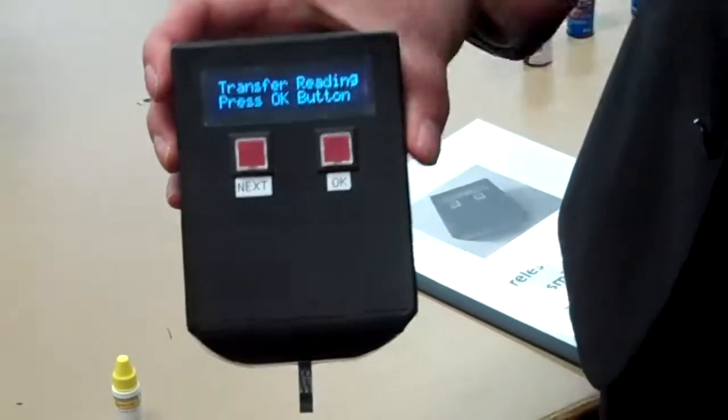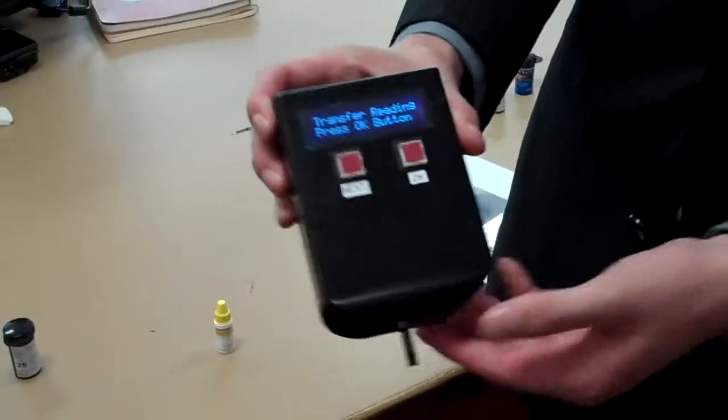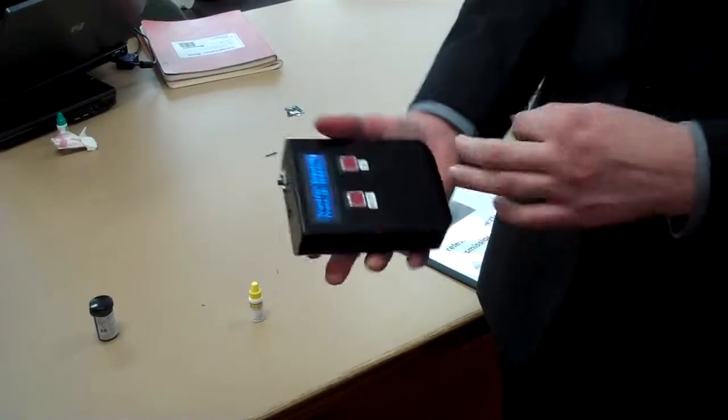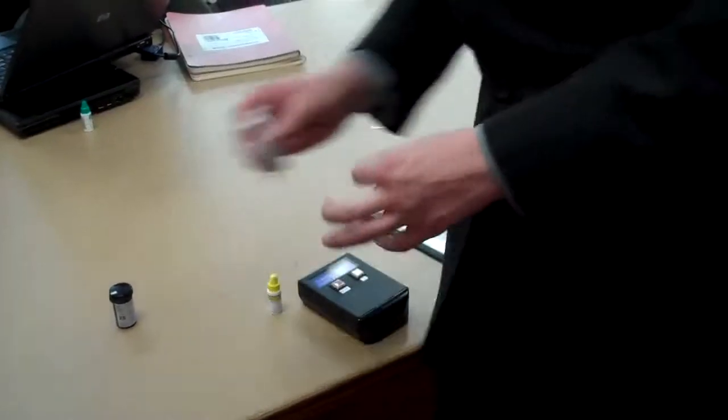When we're done with that, we can go and transfer the readings. That's over there. We'll have to do that in a different video. So there we go.